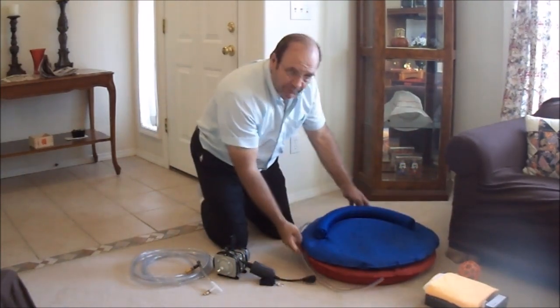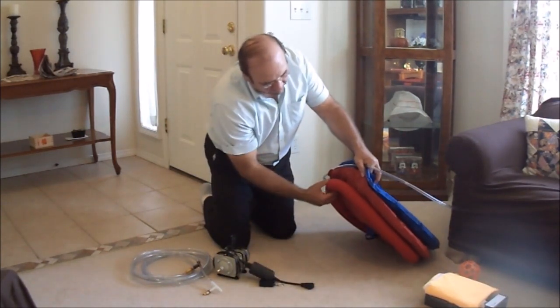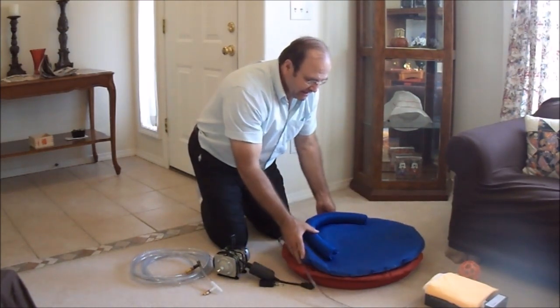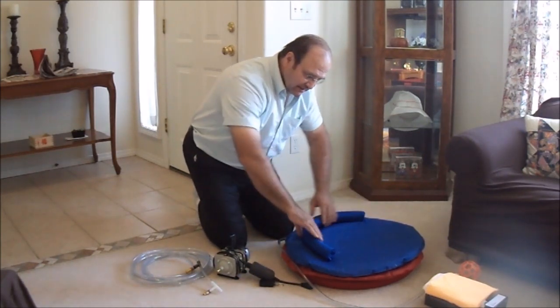This is what's going to come in the mail when you order this kind of cushion lift. I've included some things that are not really necessary for people who rise from the floor, but it's part of the offer I have on eBay, so I'm going to include them anyway. These are towels that are used as a protective barrier for people using it in the bathtub — you don't want the surface dirty from being exposed to people with no clothes on in the bath. I'm also going to include this handle that attaches to the side of the bathtub. It's not really necessary if you're not taking a bath, but it's part of the package. So these two things will be included in the box even though they're not necessary for getting up and down from the floor — it's a package deal.